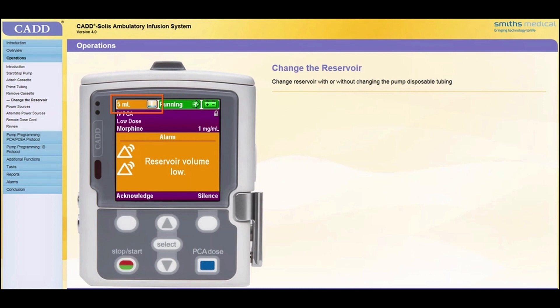To correct a low reservoir condition, a new reservoir needs to be attached and the reservoir volume needs to be reset to match the volume in the new reservoir. Following are instructions for when the CAD medication cassette reservoir or the CAD administration set needs to be changed, as well as instructions for when only the IV bag on the CAD administration set is changed without changing the administration set.